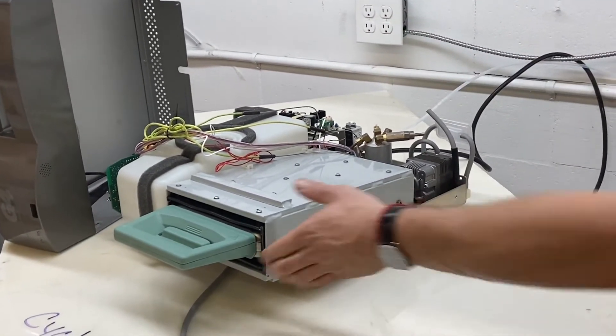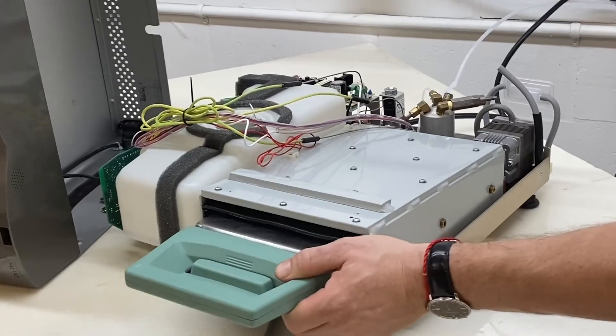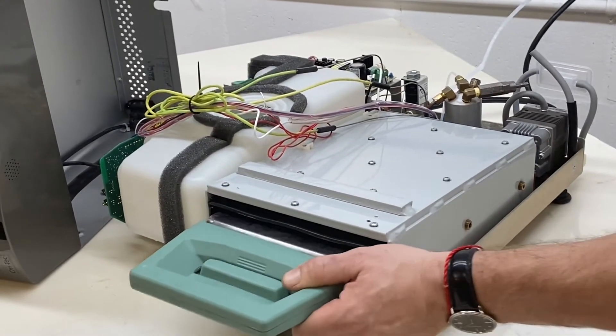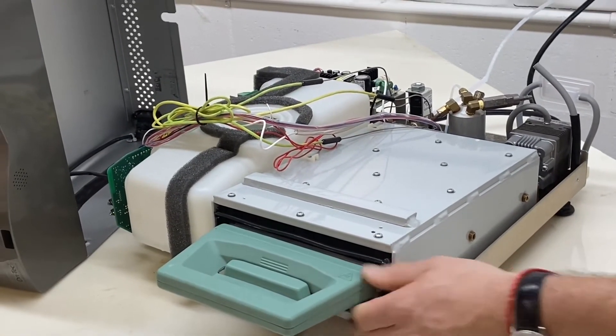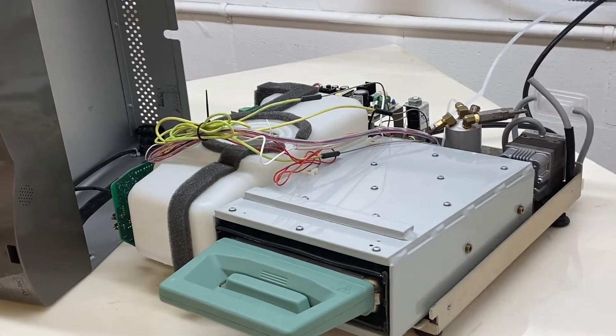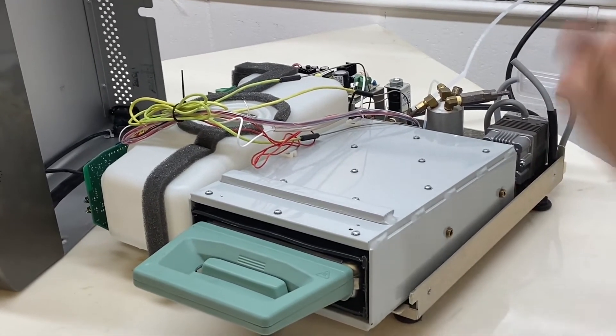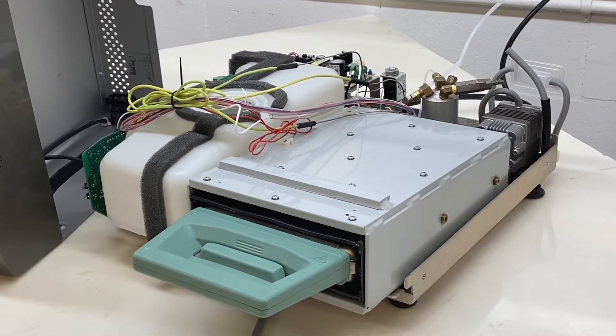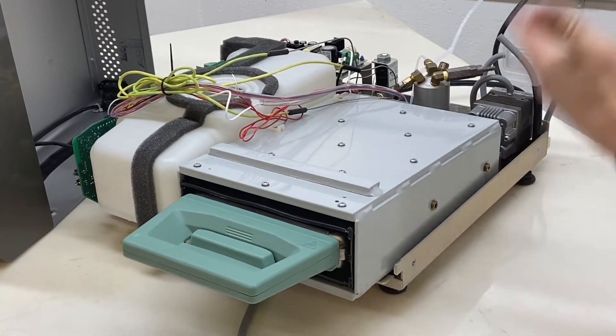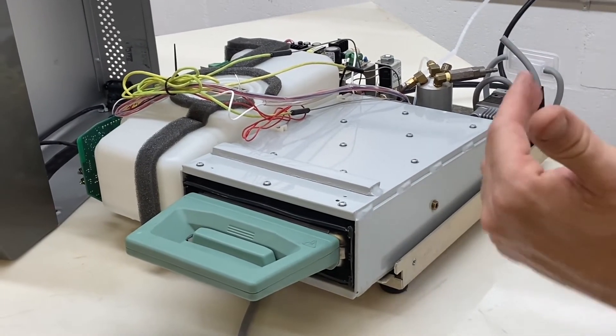Solenoid, it should always click. Click, click, click, click, click. If the spring is bent or the spacer in there gets flipped around, it could jam the plunger down, preventing it from clicking, preventing it from exhausting.